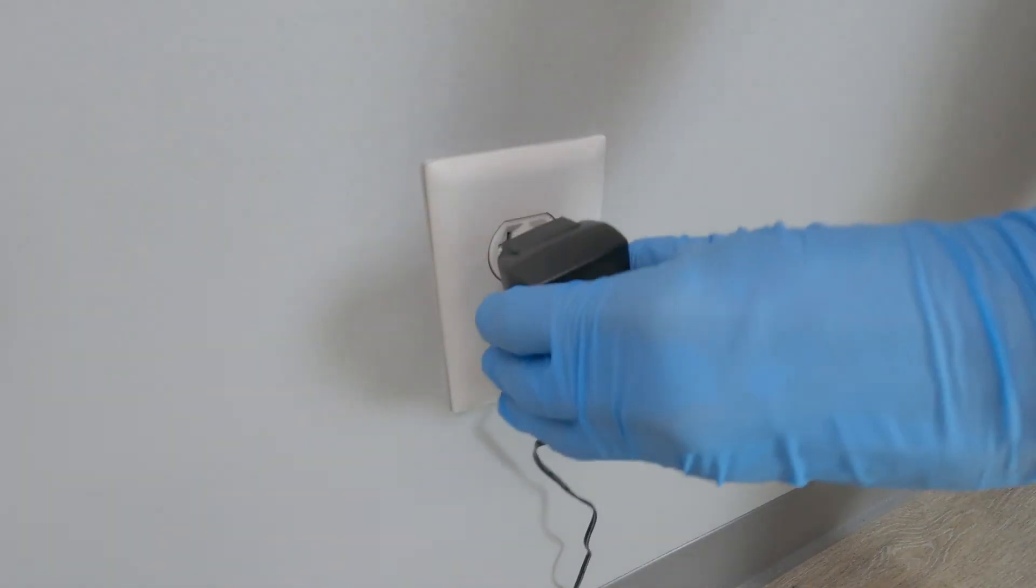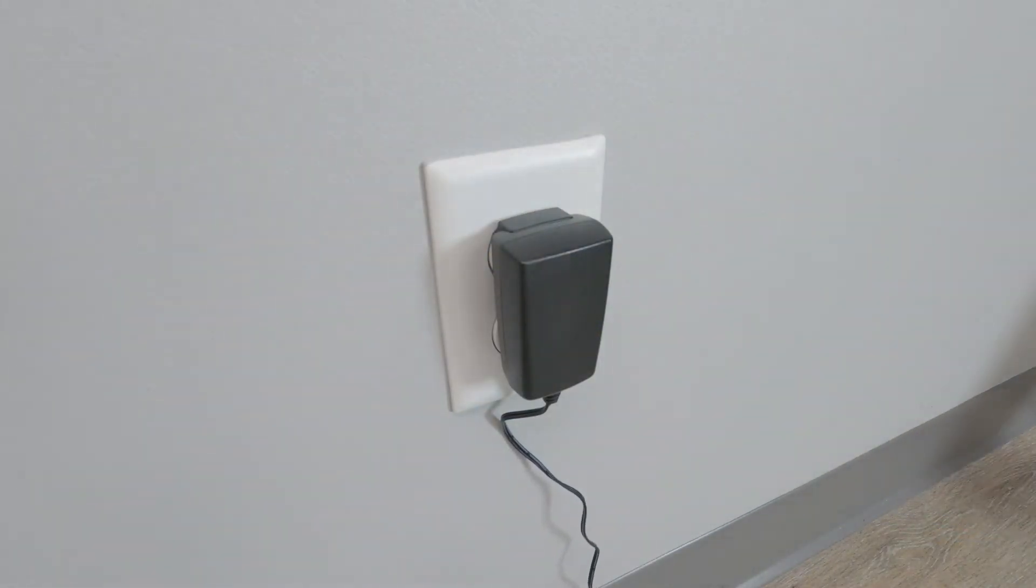Finally, connect to a power source. Now, the patient's core temperature will be shared with your external device.